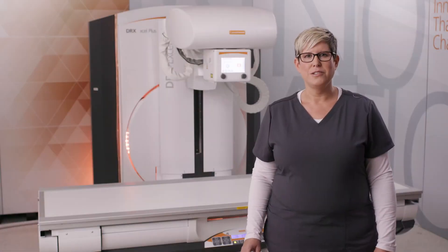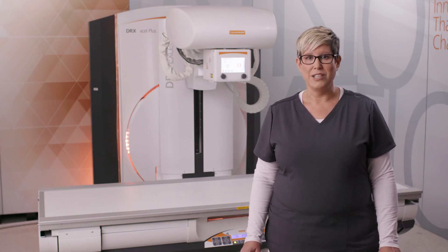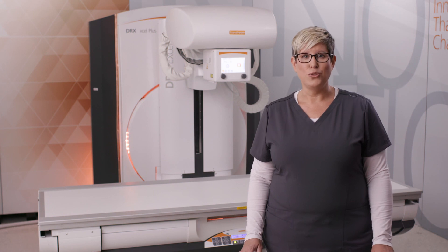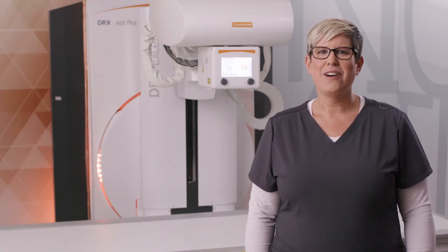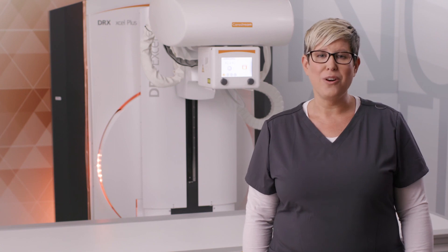When performing a fluoroscopic exam, you can choose between three different types of image acquisition: single shot, which can be used for scout and overhead images, in addition to fluoro and sequence imaging. The system supports up to a 100 kW generator. An effort was given to the structure and design to ensure that the system is easily accessible for routine maintenance. You can connect directly by VPN to obtain information about the unit's state, either remotely or on site. With CareStream, you are at the center of an extensive and experienced support network that is passionately focused on your ongoing success.